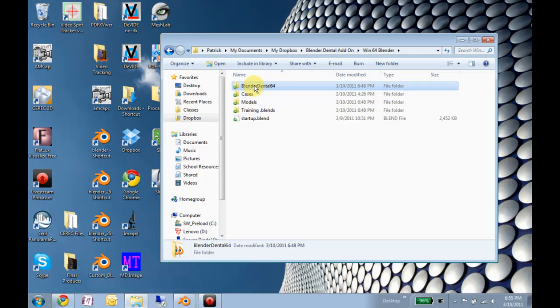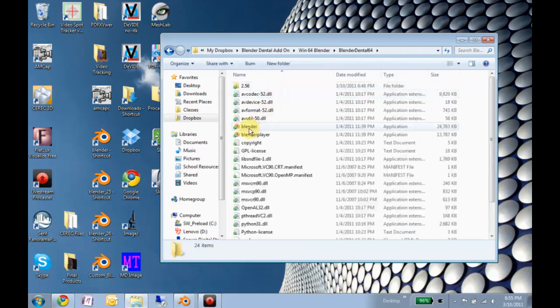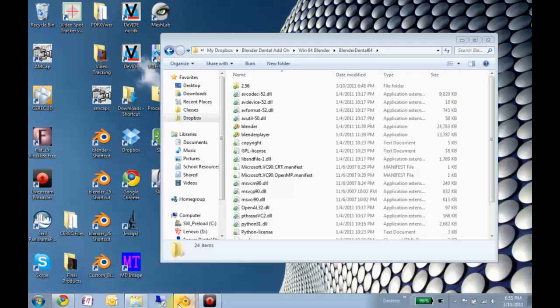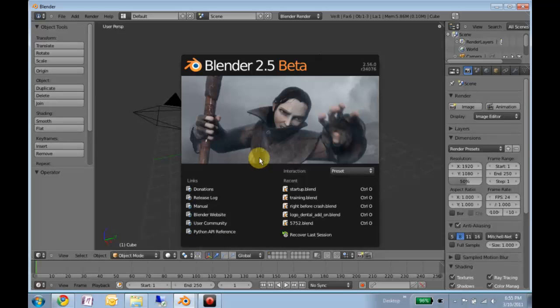So you come here, open up Blender, which I've already done. And this is what you'll see.